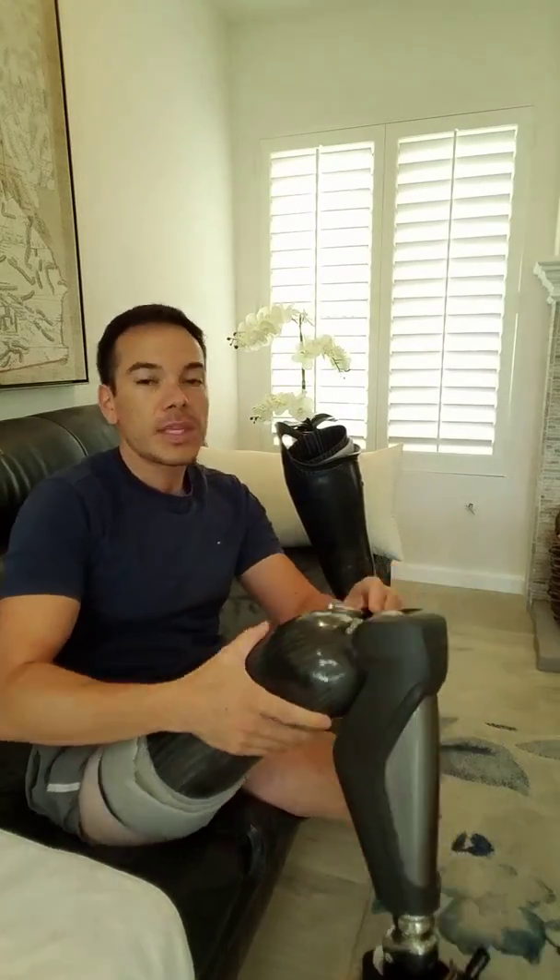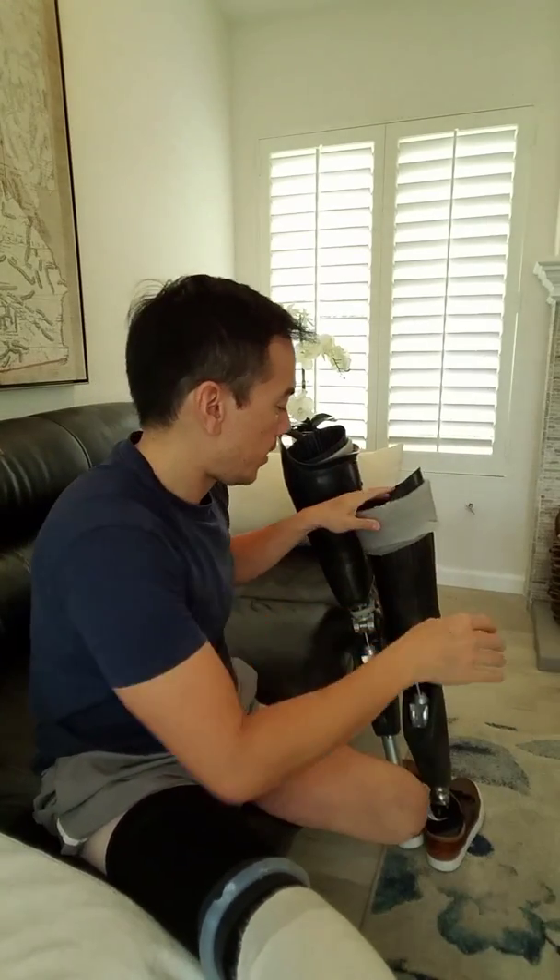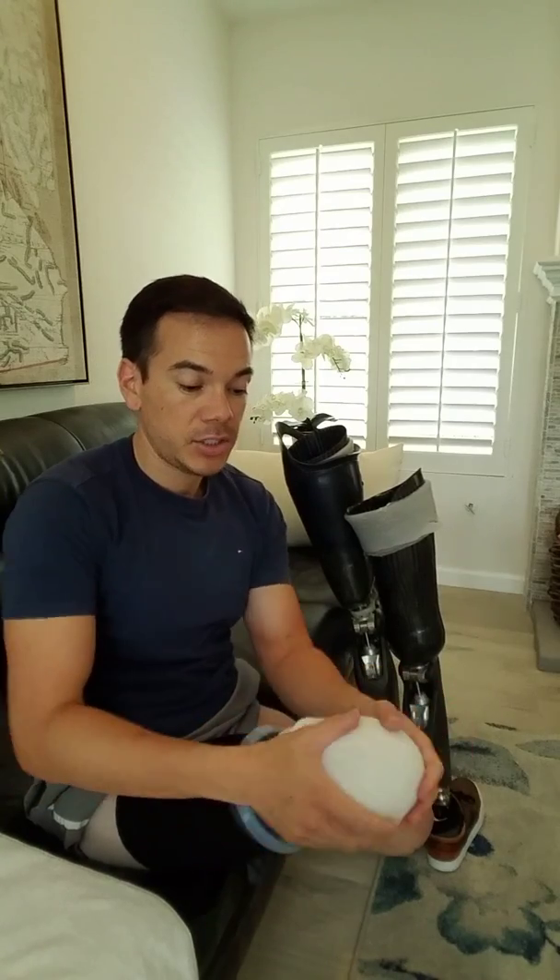So I roll this down and take off the valve. Watch how hard this is to pull off — that's how tight this new EcoSeal liner keeps my prosthetic on me. I wear two little one-ply socks on top just to take up any extra volume, because I like a really tight fitting. The more intimate the socket fit is, the more control you have and the more a part of you it feels.